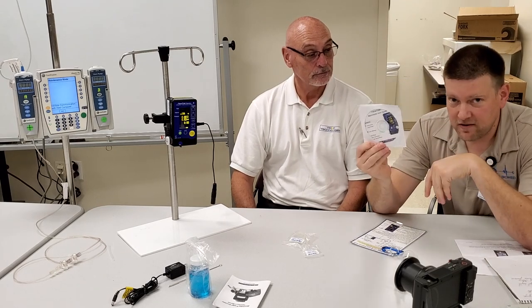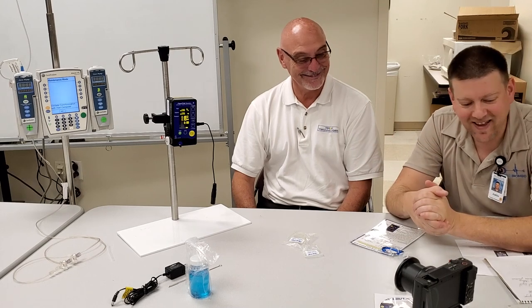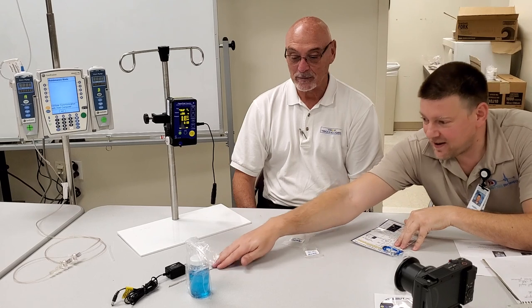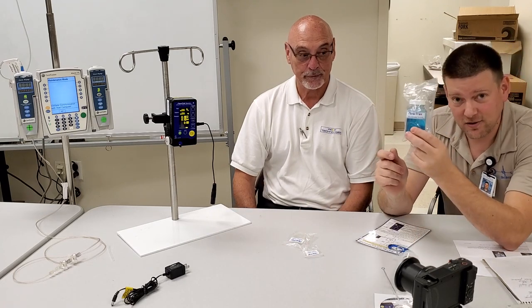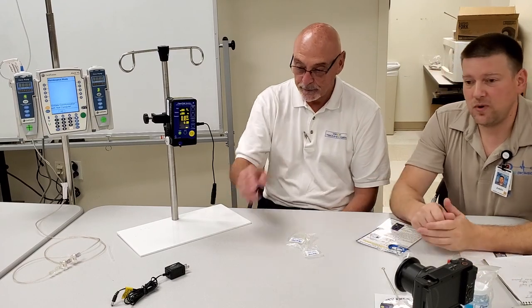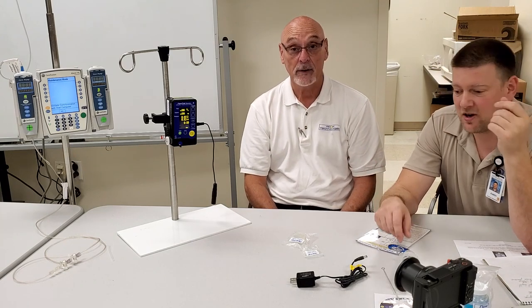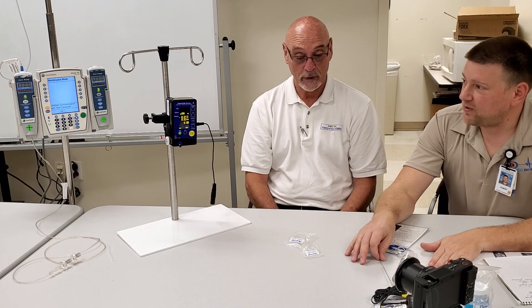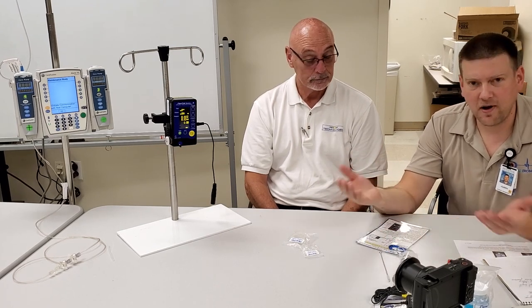In the box you also get a flush bottle for cleaning, a software suite with instructions on how to prime it and use it with different pumps — save the CD, trust me — a very in-depth operator's guide, a cleaning brush, Flow Trax cleaning solution which is basically unscented Windex, and an AC adapter. With a ten-hour run time you'll probably never need the adapter in the field, but it's handy at a bench.